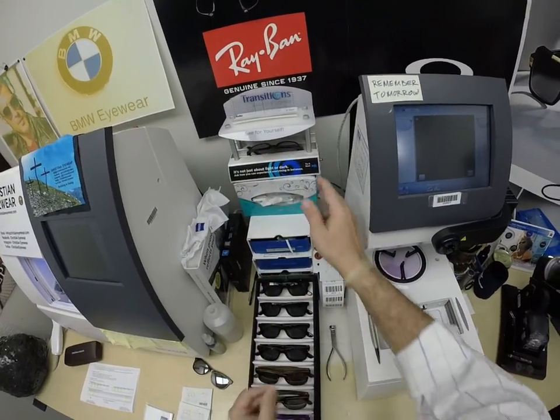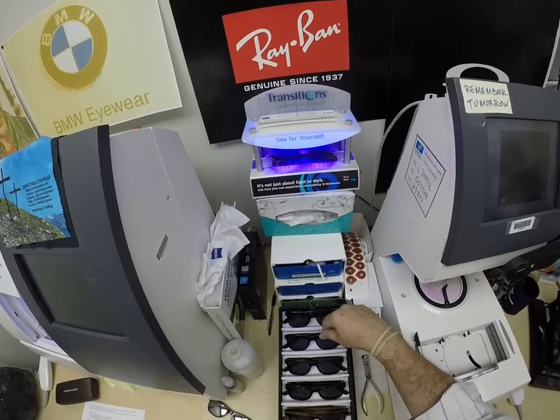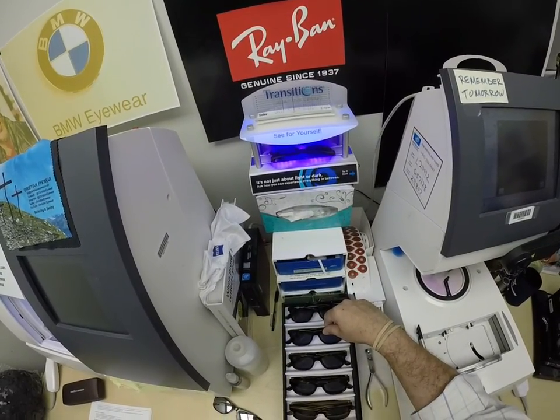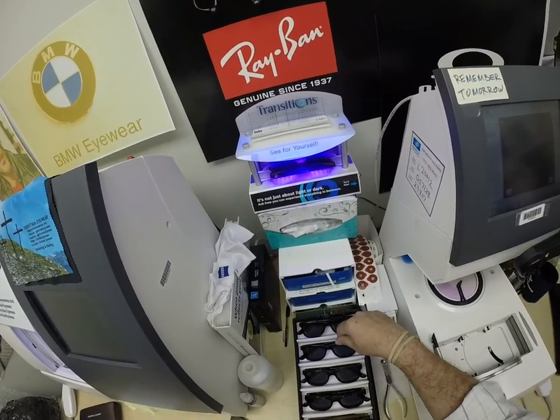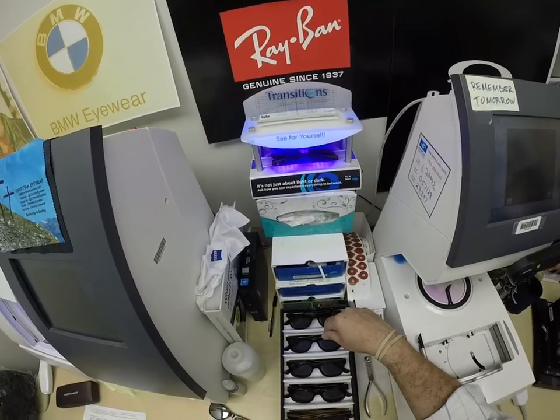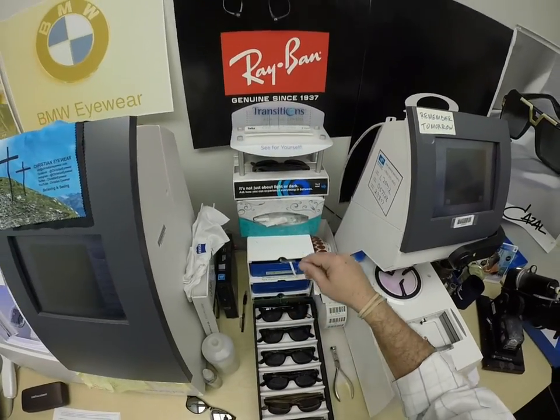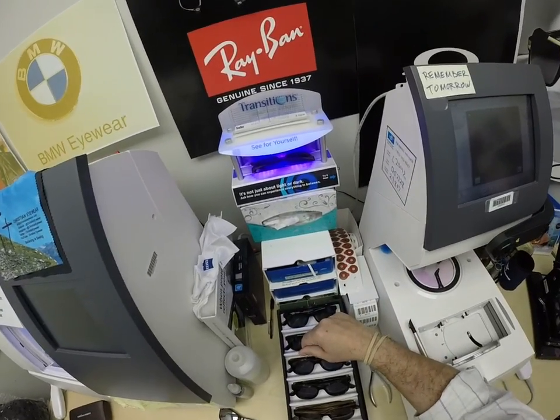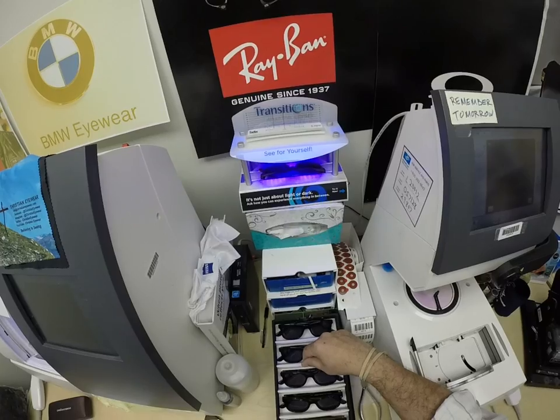As you can see, it takes about 30 to 45 seconds for the lenses to darken, a little bit longer when you come back inside — 45 seconds to a minute, minute 15. All photochromic lenses will get dark on day one and continue to darken every day for the first couple weeks as exposed to the sun. After that, they will work for years at maximum performance. The only time they won't work is if you're behind the windshield of a car.